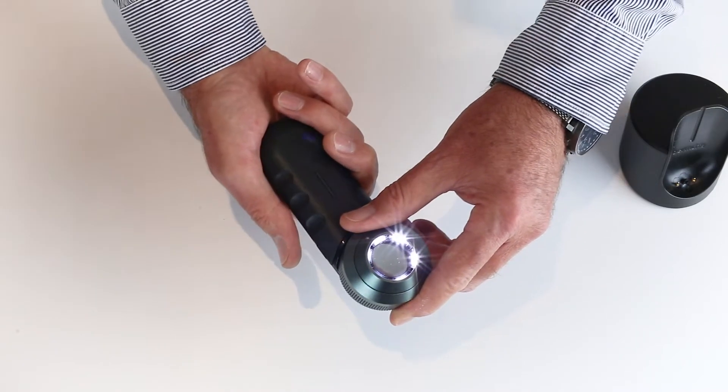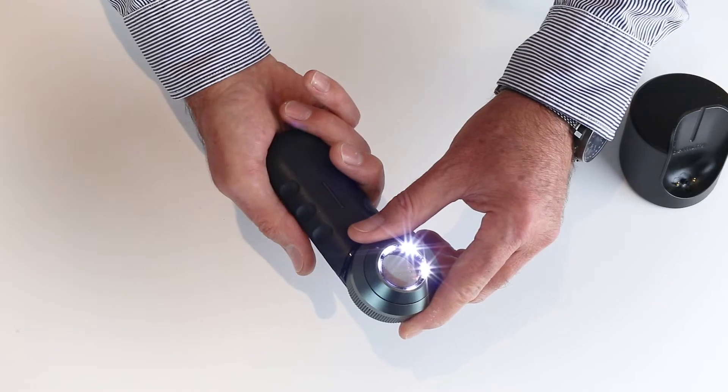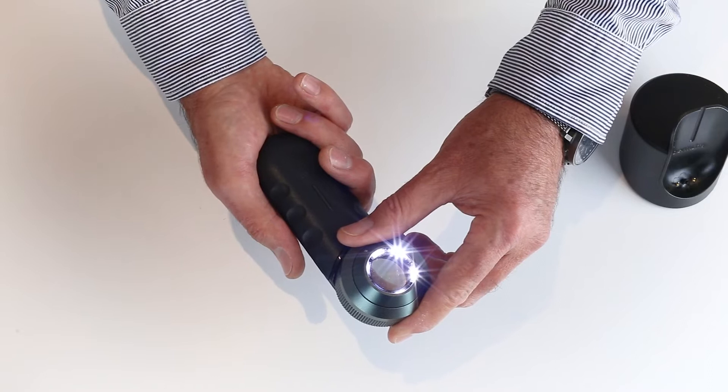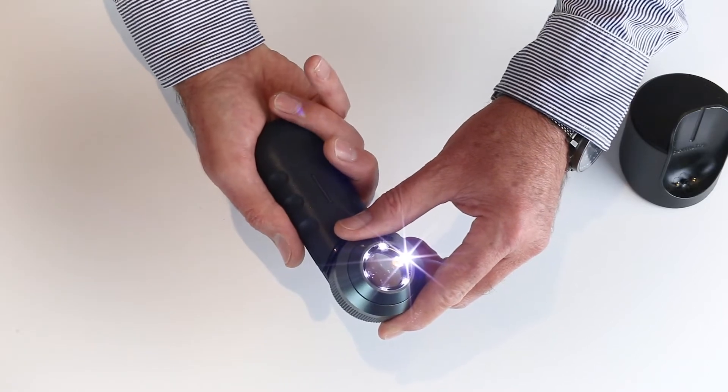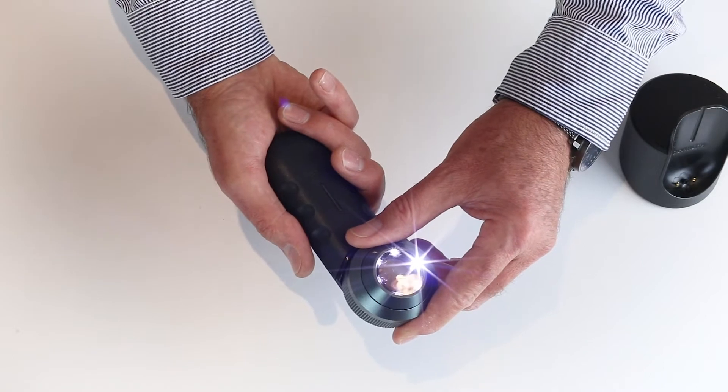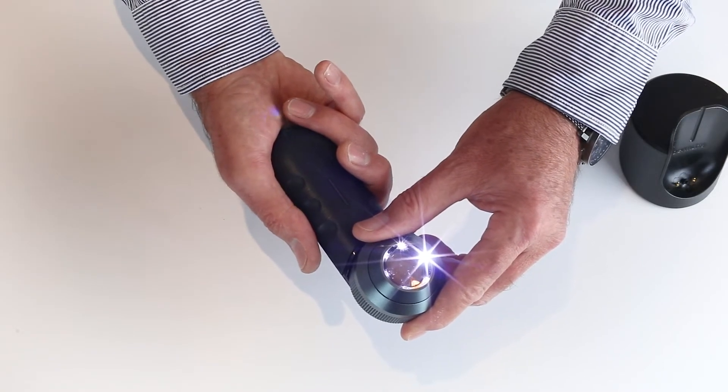Polarized mode is the usual mode for looking at skin lesions. It takes away any reflection or glare and gives you better color definition. Non-polarized mode is used sometimes for lesions, for example seborrheic keratosis, that are easier to look at under non-polarized light.